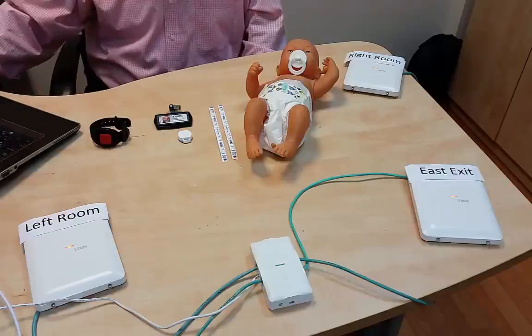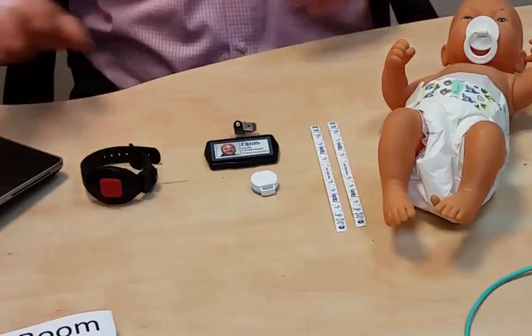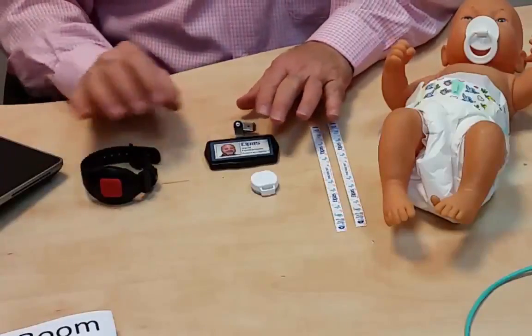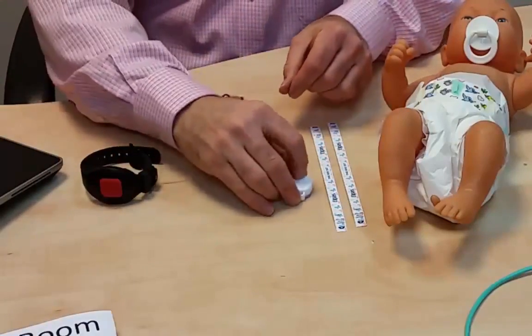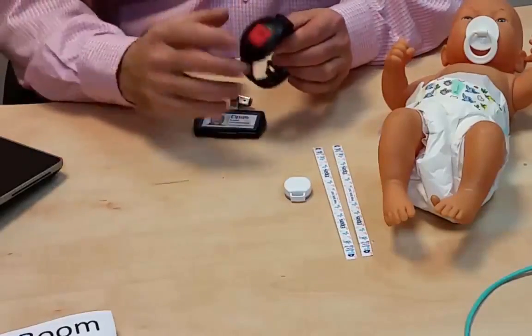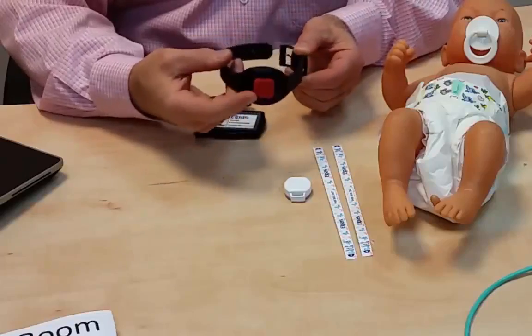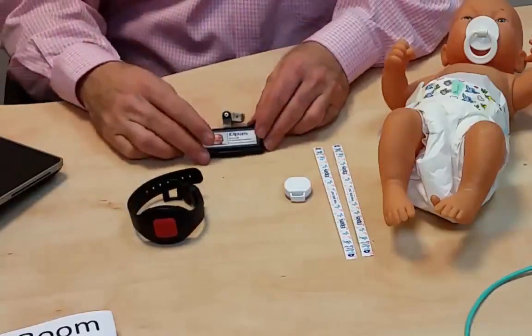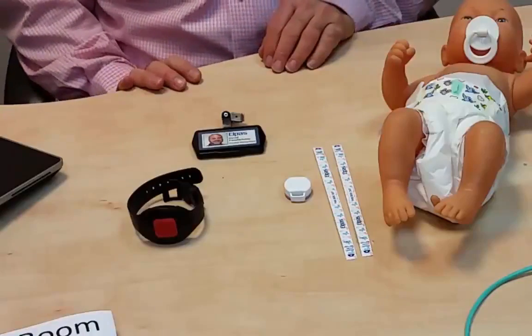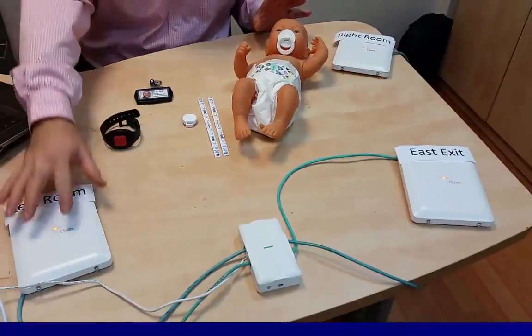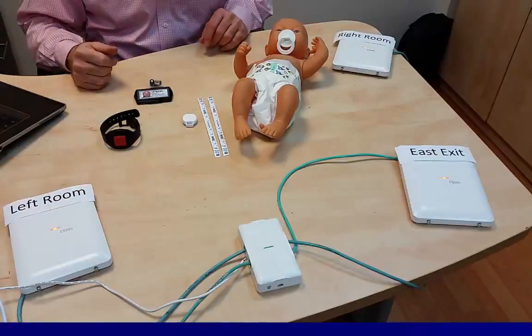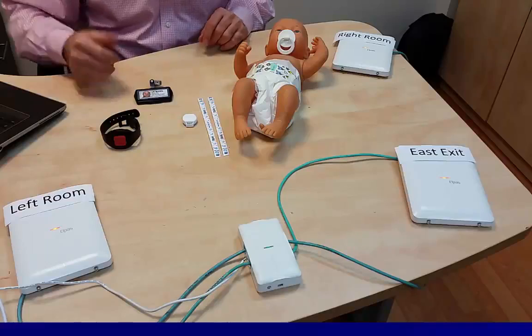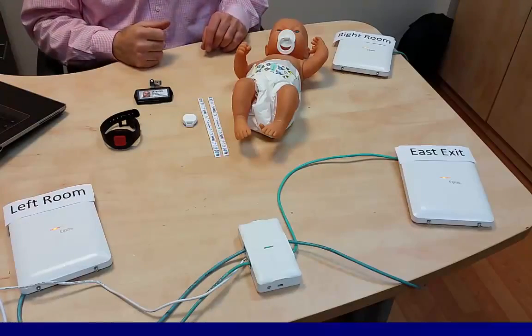Let's go ahead and start off with our hardware. So the hardware consists of our tags, of course. So you've got the infant charm, the ELPAS charm, with its straps. We've got also an ELPAS bracelet, which is used for residents or could be used for the mother. And we have a staff badge, an ELPAS staff badge. As far as the infrastructure goes, we've got our ELPAS beacons, which are placed at strategic locations, particularly exits, and the controller, which you do not see here, the junction box.